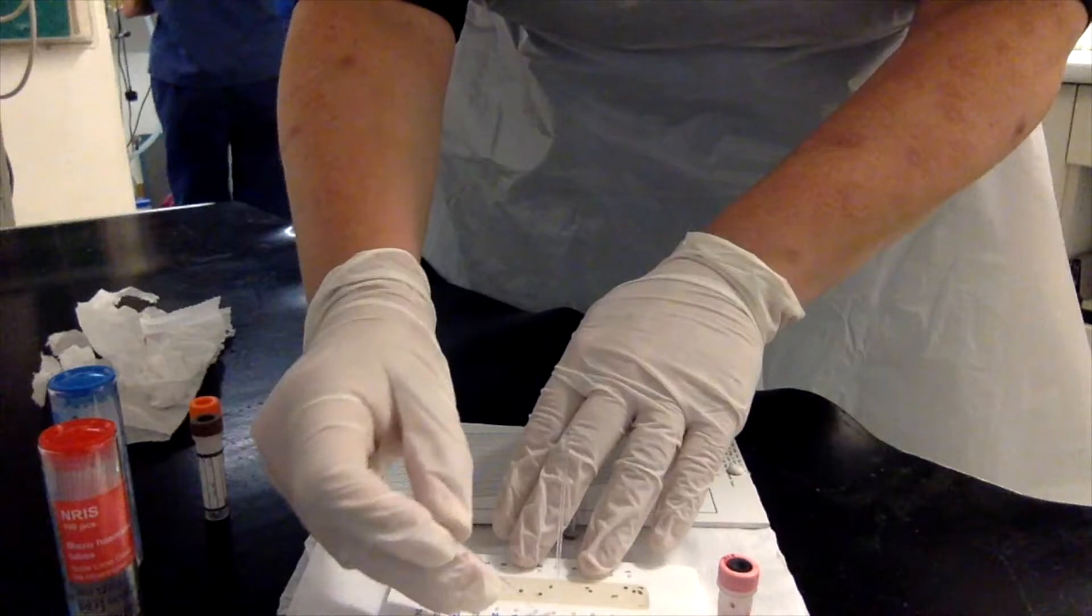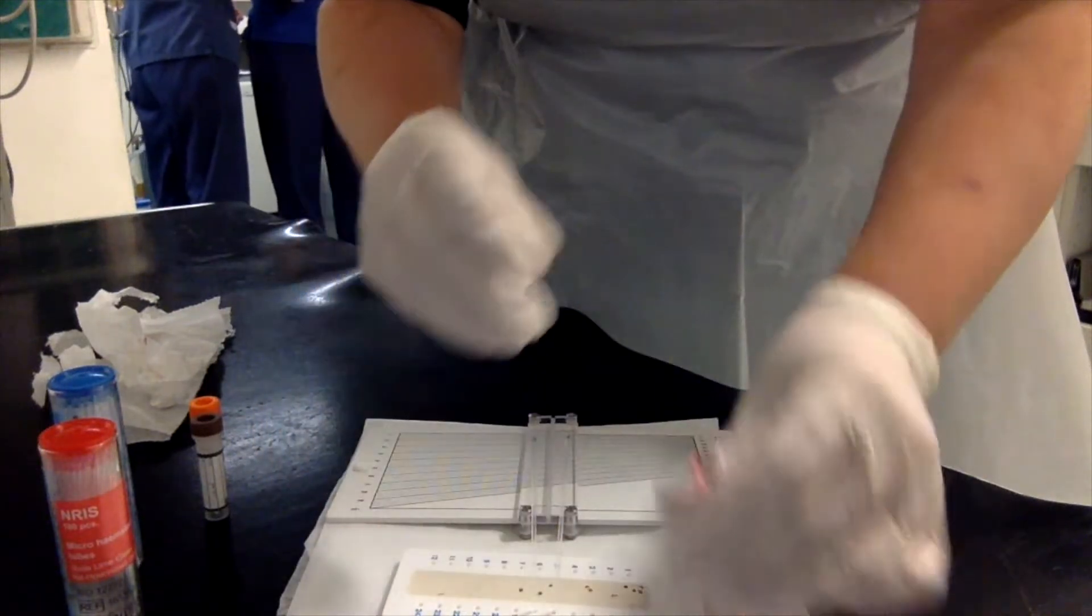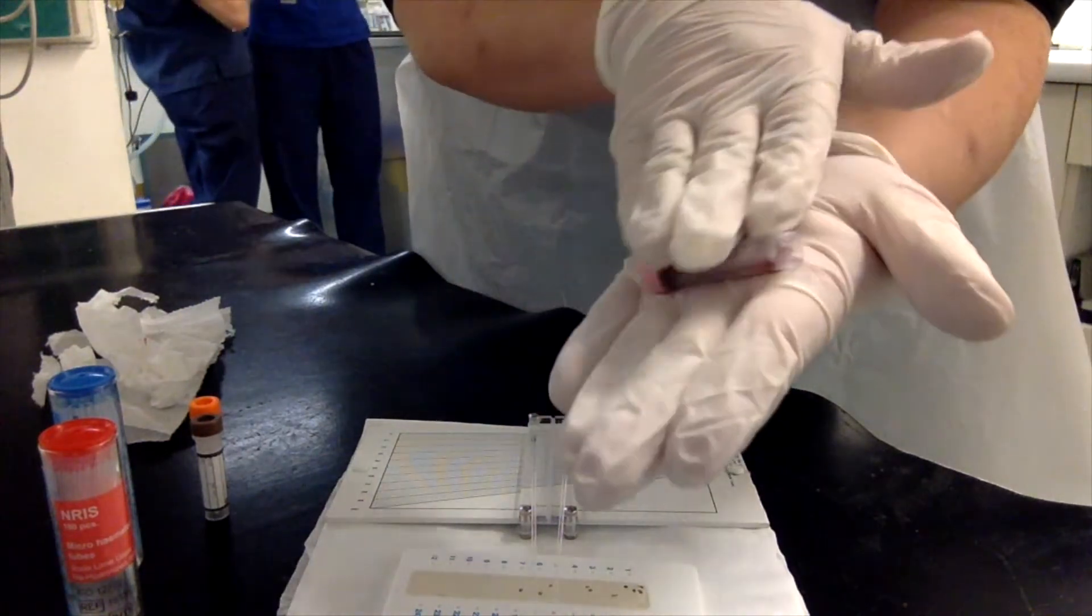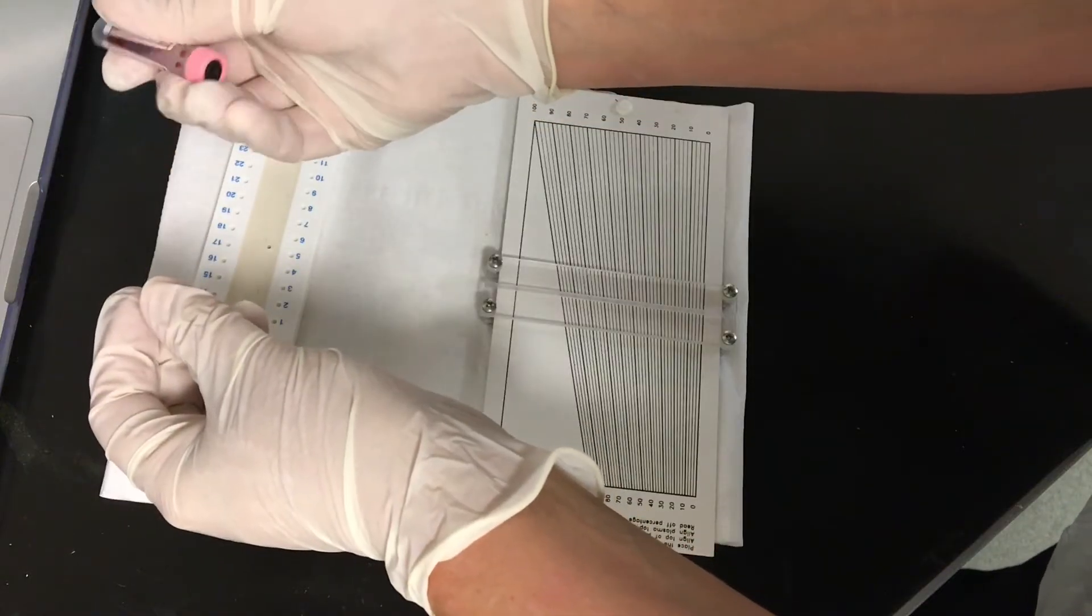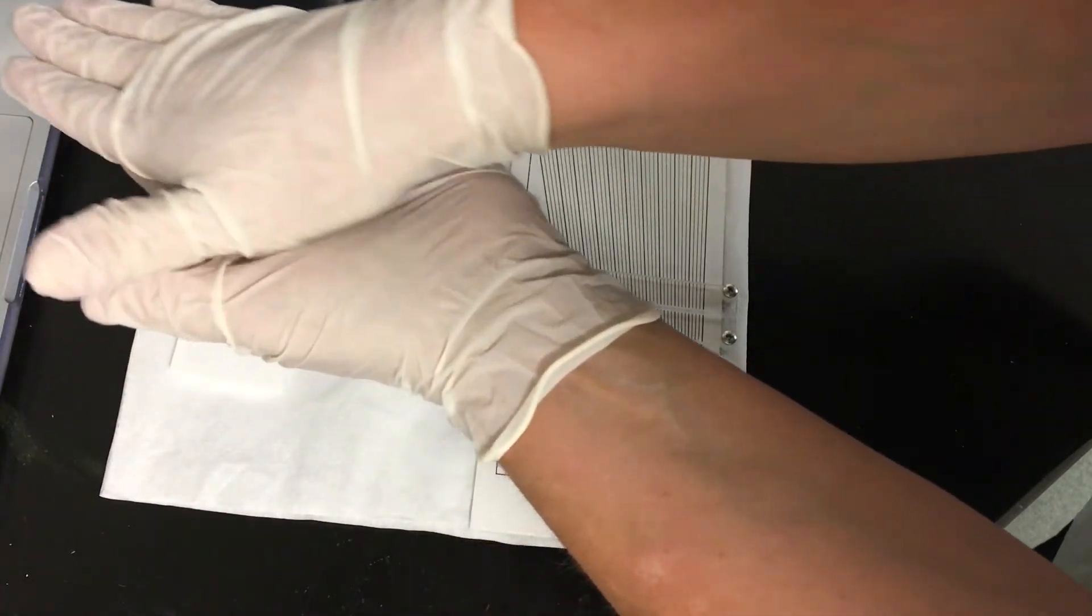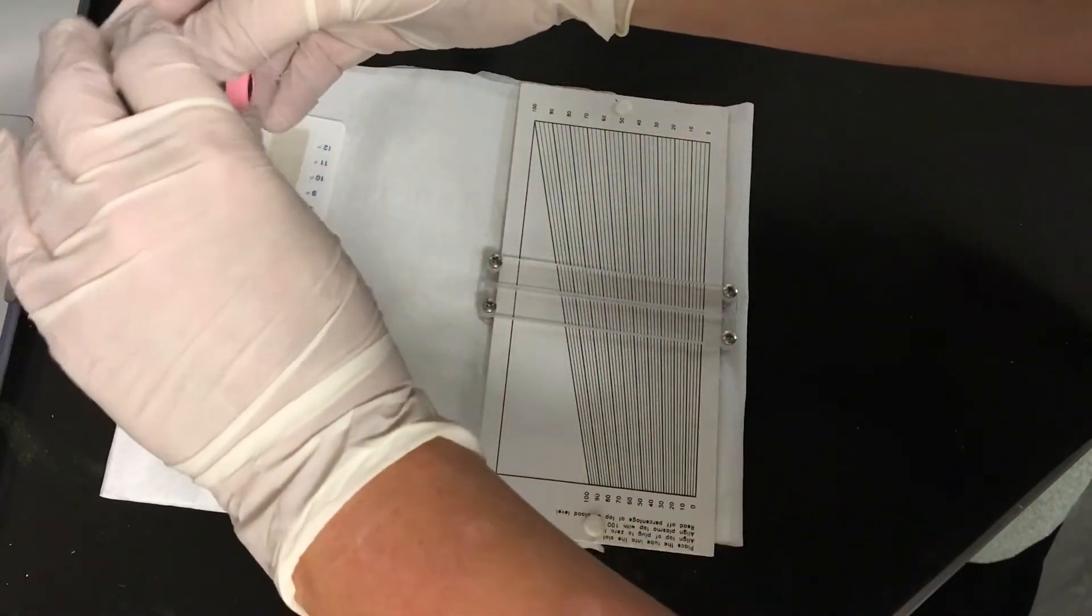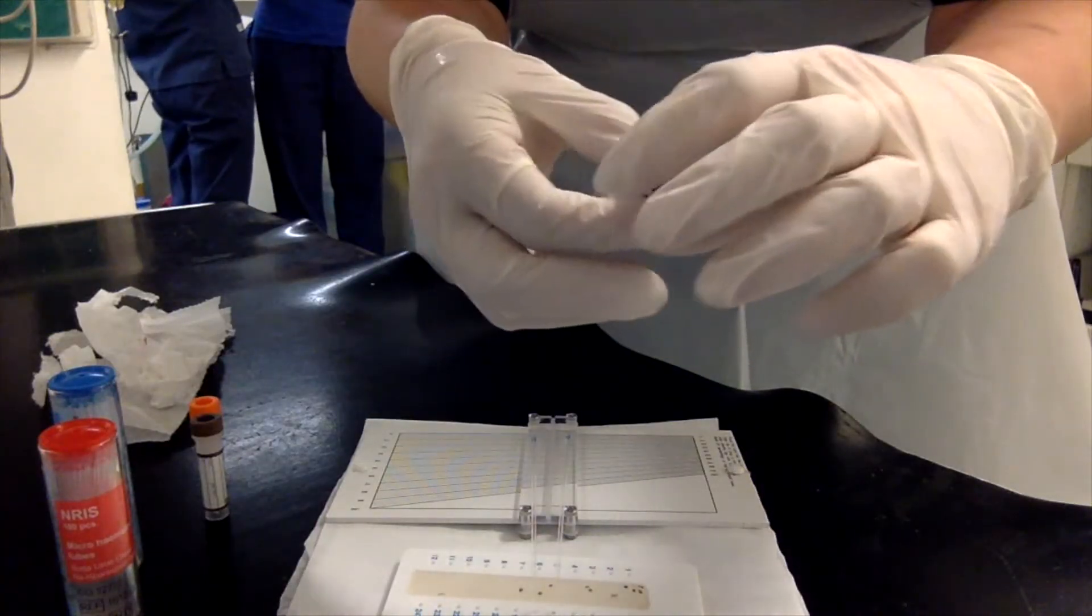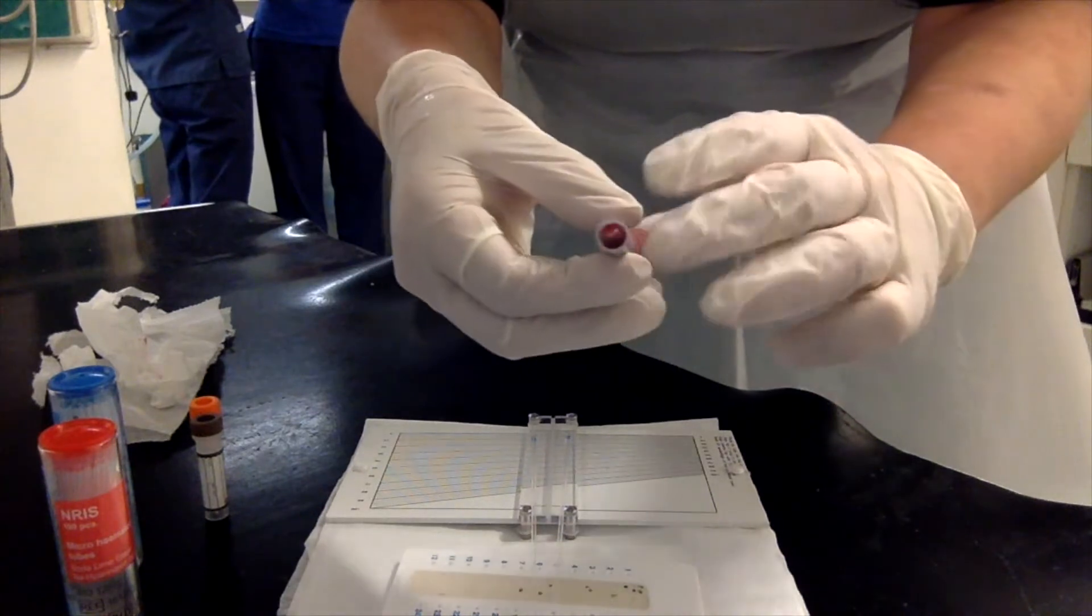This is the PCV, so I have already selected a blue tube because I do not want any anticoagulant. I have selected my EDTA sample and I am gently rolling it either between my palms or inverting it like so, up and down. Either is acceptable.